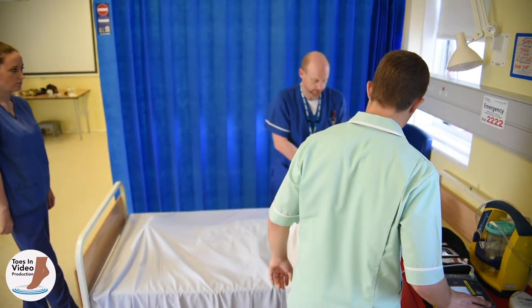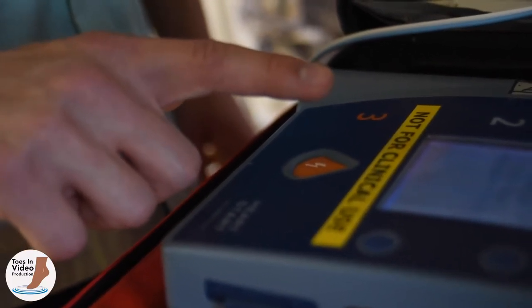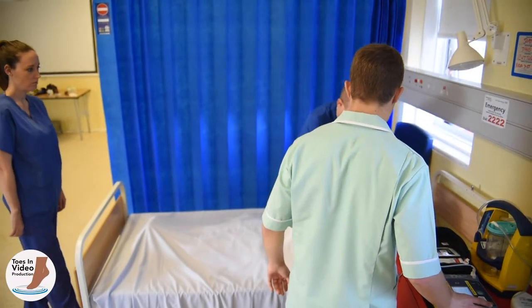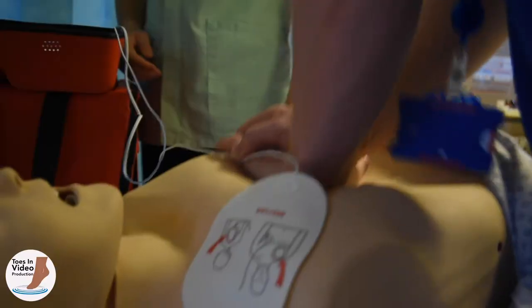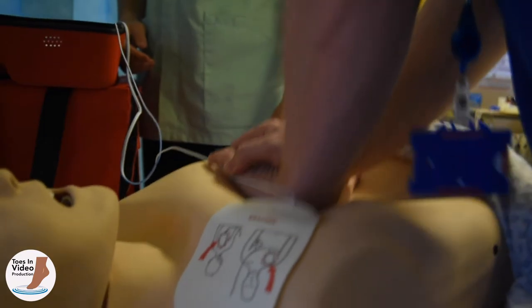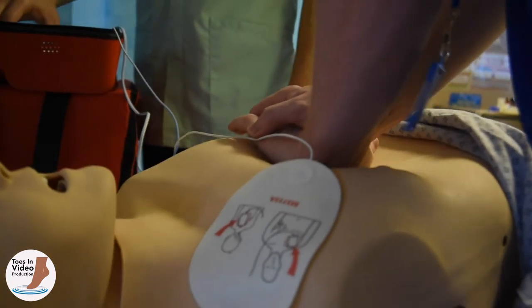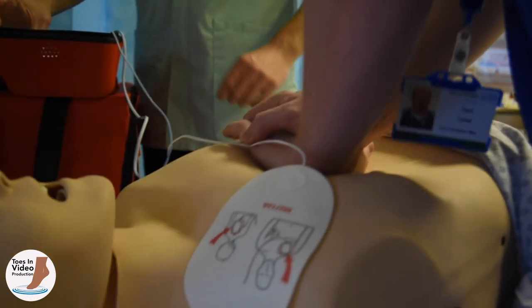You can reduce the chance of accidental shock to other rescuers by keeping your hand away from the shock button until it is illuminated and it is safe to shock — press it once firmly and withdraw your hand. It is now safe to resume CPR in contact with defibrillator pads. Bear in mind extra safety requirements if the patient has collapsed in the shower, bath or on any wet surface. Ensure as much water is drained away as possible and that no rescuers are in contact with the patient via any standing water — the patient needs to be dried only where pads are going to be placed.